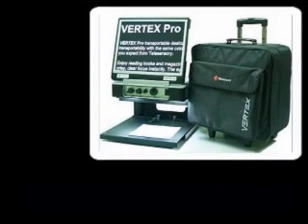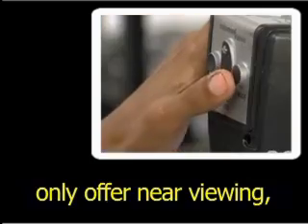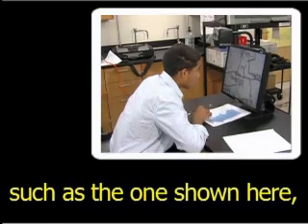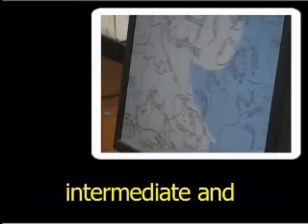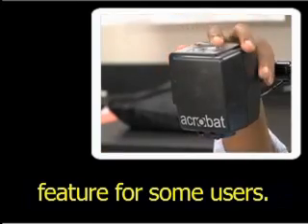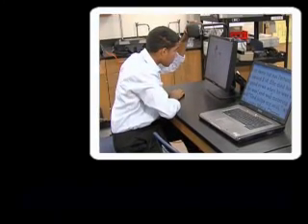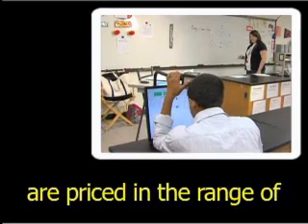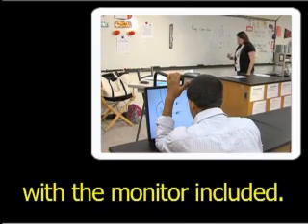The Vertex Pro model is shown next to its carrying case. Most desktop models only offer near viewing, but some manufacturers have begun making systems with a camera that can be rotated for intermediate and distance viewing, which can be a very beneficial feature for some users. A user adjusts the camera to enlarge handwritten material on a whiteboard at the front of a classroom. Desktop video magnifiers are priced in the range of $1,500 to $3,500, with the monitor included.